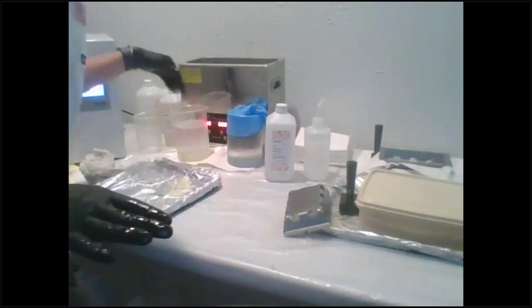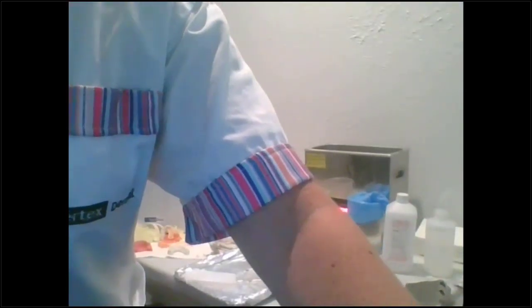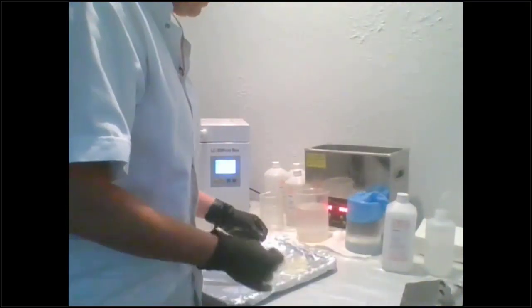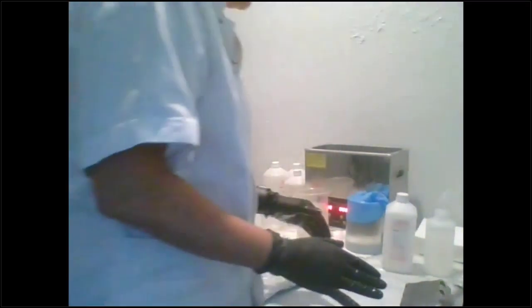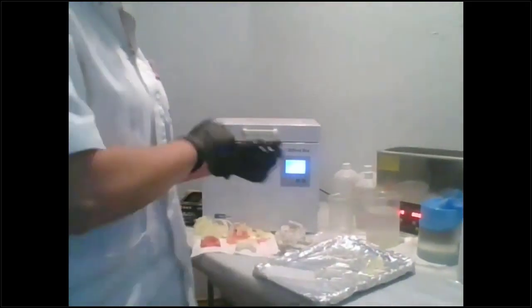And I know IPA is hard to come by right now. I actually bought some from the big Costco right before this thing happened, so I have a lot of it. But you can use bioethanol. That's actually part of the FDA clearance that we have. So 3 minutes, then 2 minutes, then you're going to blow dry.